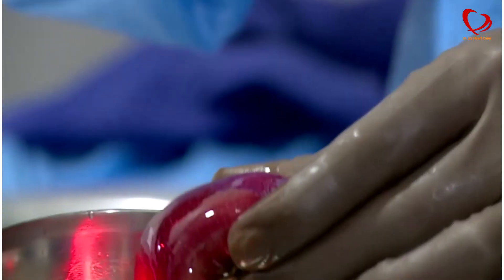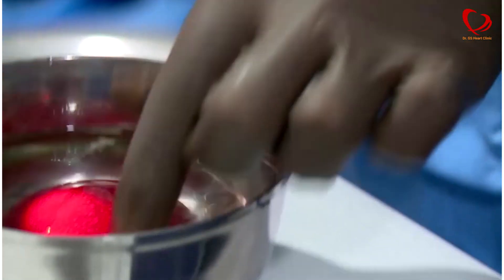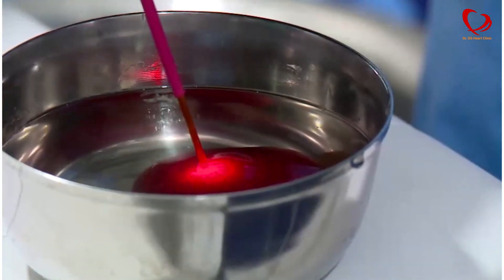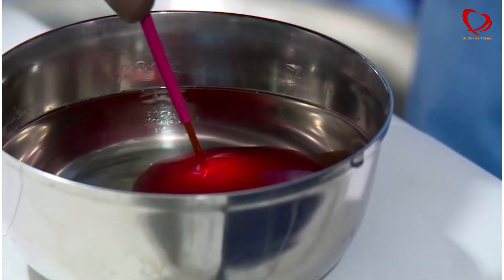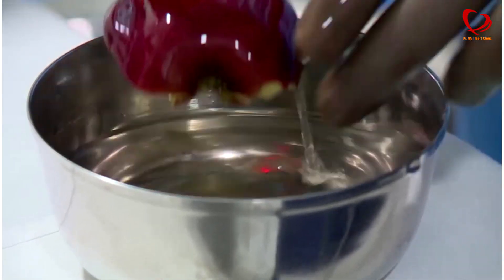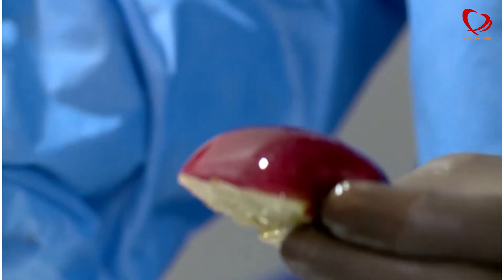We have an apple here. I am trying to show you how laser can penetrate the apple. See this — it has made a nice, clean hole using the laser.